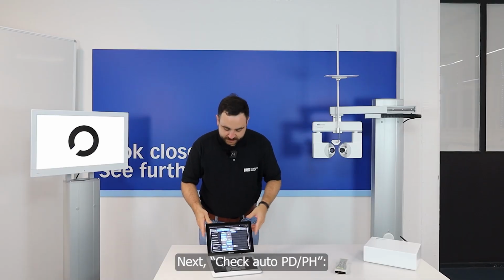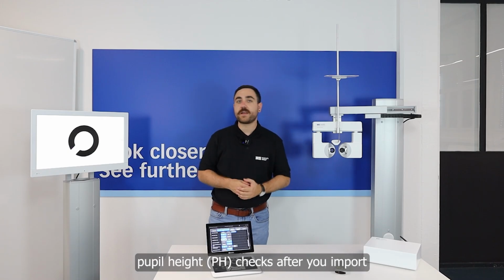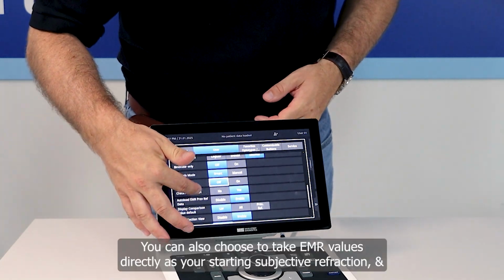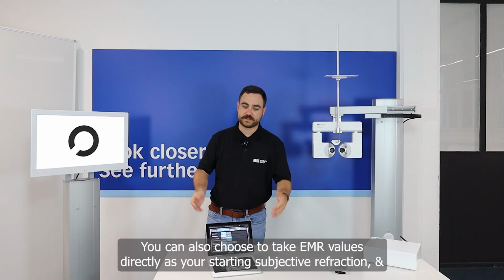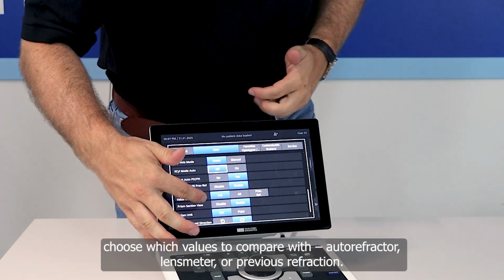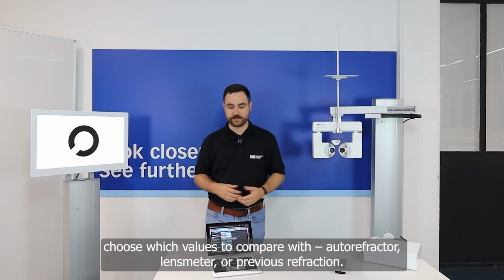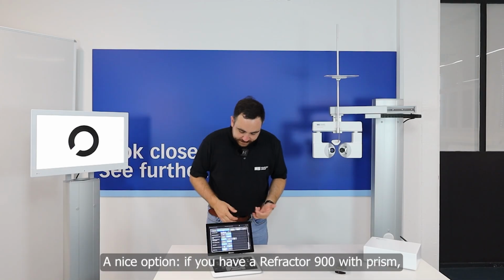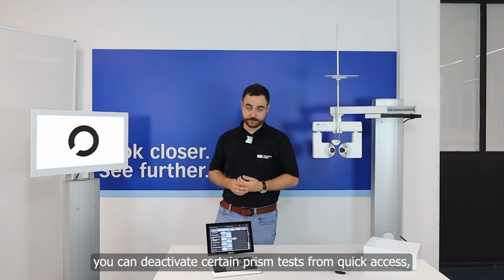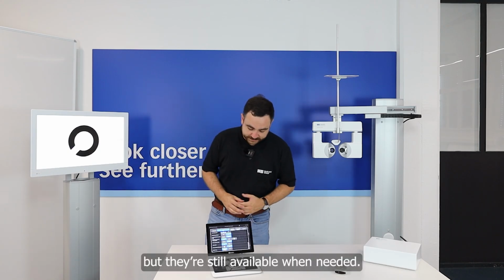Then we have check auto PD PH. It means that the pupil distance and pupil height should be checked after you insert values from the EMR system. And there you can also say, directly from the EMR system, I want to have the values as my subjective refraction. And you can say which values you want to compare it with: lens meter, autoref, or the previous refraction. A really nice thing is, if you have a refractor with prism, you can deactivate them, but they still can be used. But that is something I will show you later in more detail.